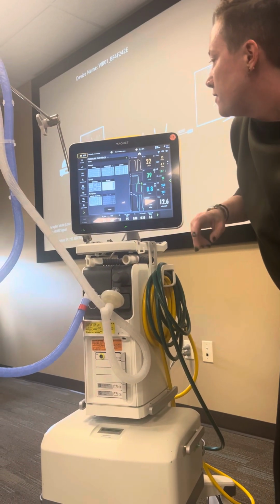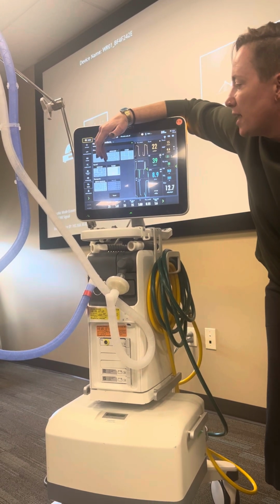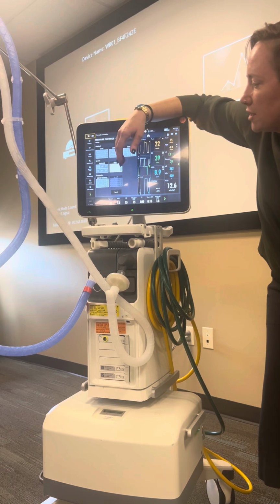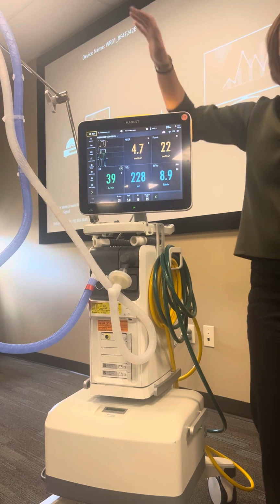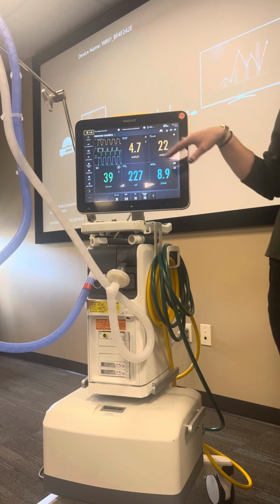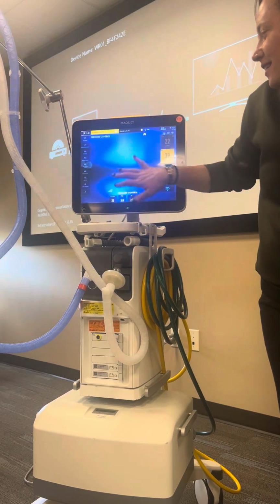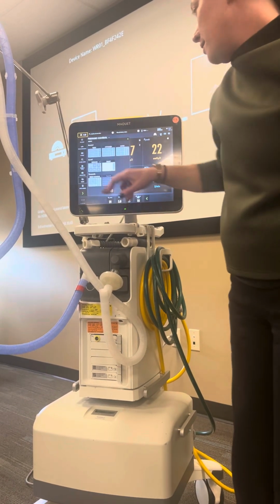You can go to different views. This is going to be potentially something that you might do if you have clients visiting and you don't want this to be distracting. You have two different views that I like to use for clients. The first one for my sick patients is distance. So I can stand way in the back, they can be right with their patient or their pet, and I can have these big numbers to make sure everything looks okay. But we can also go into family view where it's just a little bit more peaceful. You can lock the screen if you want to. I'm not sure why you would, but you could.